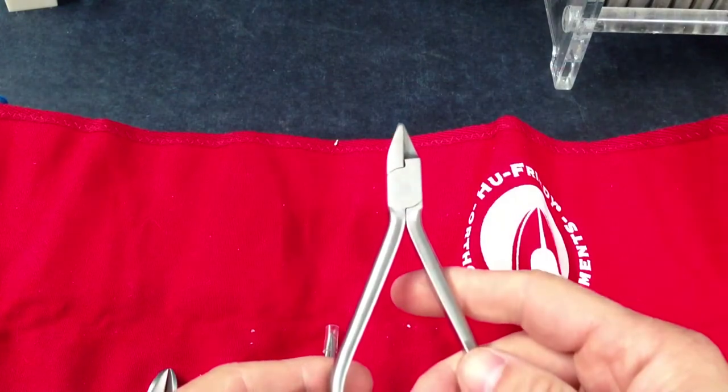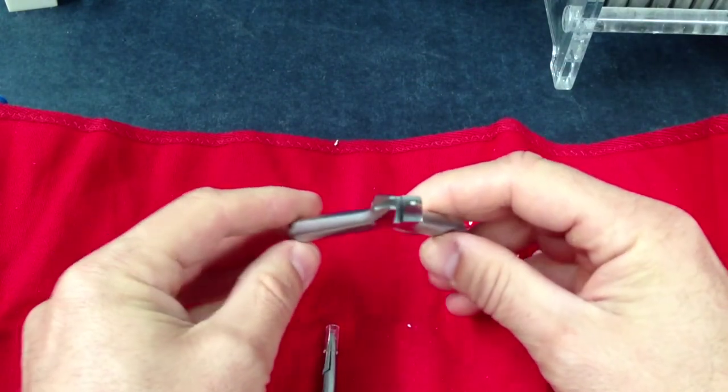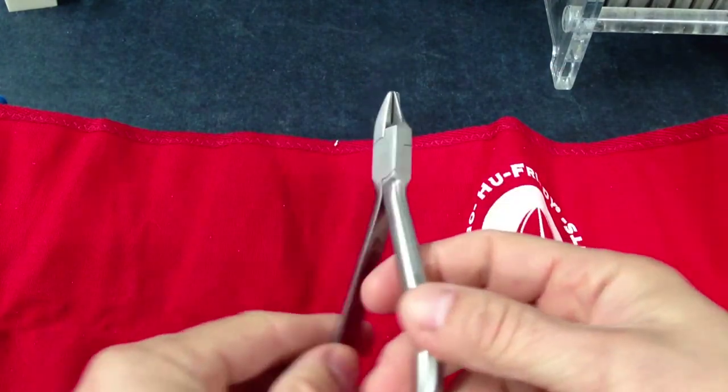You will be using your three-pronged pliers. As you can see, there are three prongs, and the pliers do the bulk of the work.